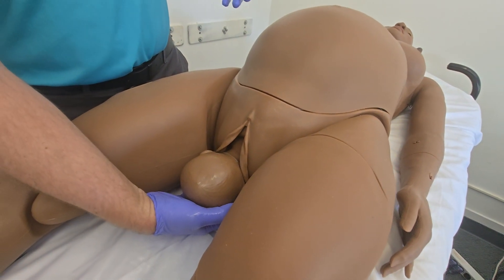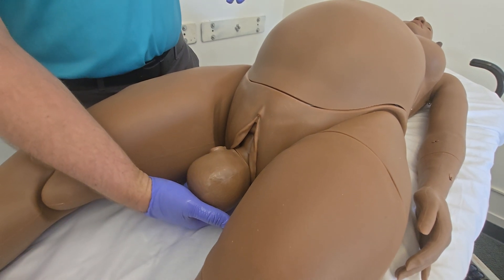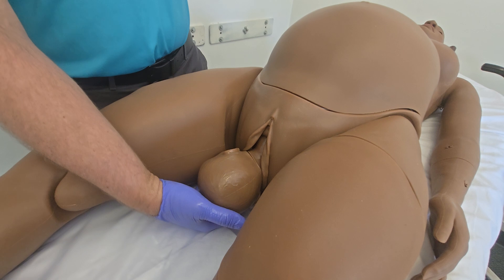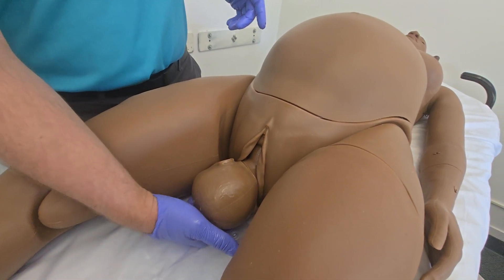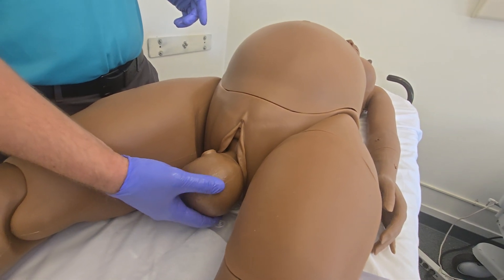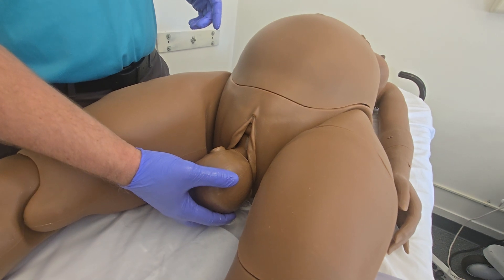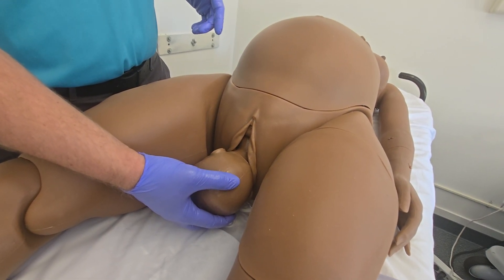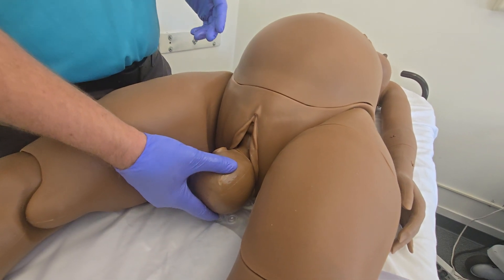Here's the head being delivered. As it's going in, the shoulder dystocia complication — we'll see the baby's body turn; that's from the cephalic delivery module actually performing that rotation. We're going to start seeing some turtling — the baby's actually going to go back in slightly. The leg position is a bit off so it may not be super easy to see, but we do have a shoulder dystocia complication with the baby's head turned or rotated.